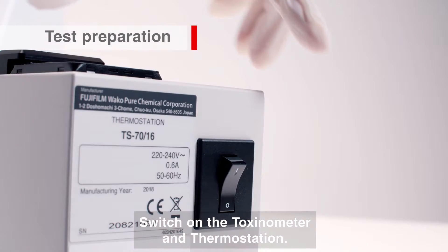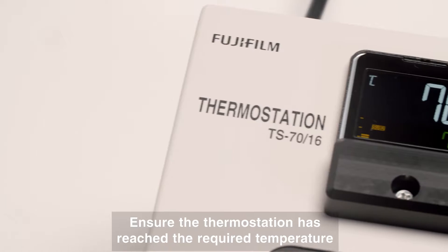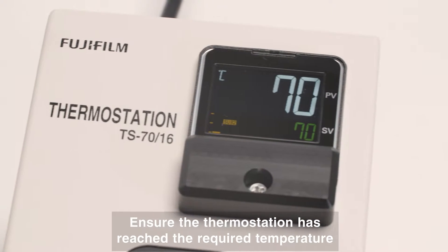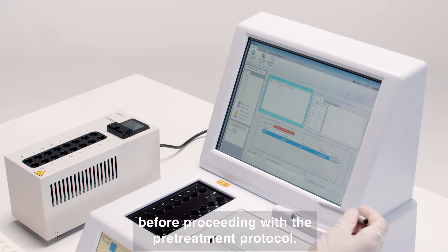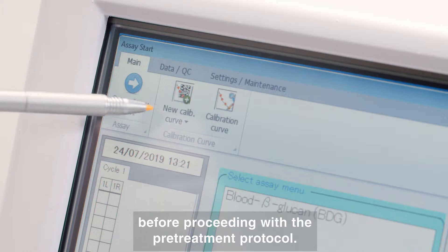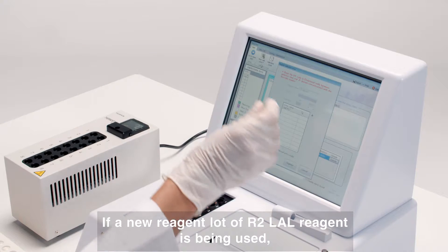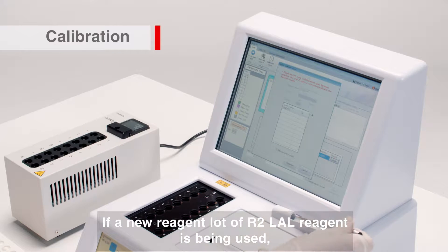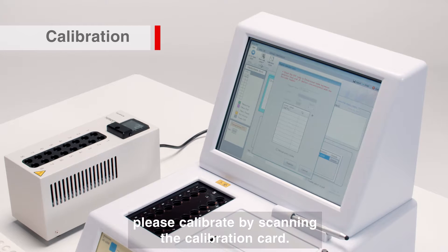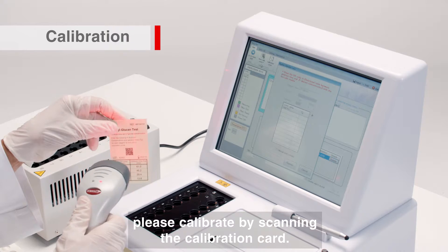Switch on the Toxinometer and Thermostation. Ensure the Thermostation has reached the required temperature before proceeding with the pre-treatment protocol. If a new reagent lot of R2-LAL reagent is being used, please calibrate by scanning the calibration card.